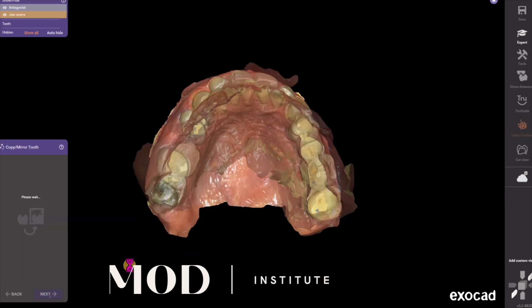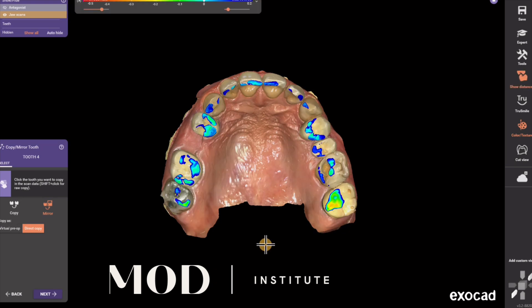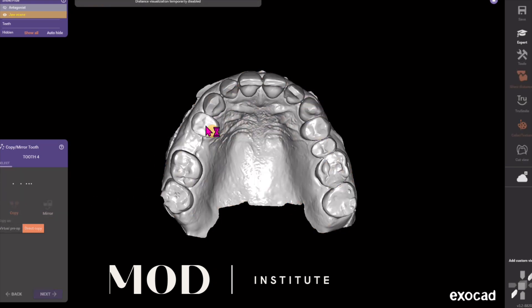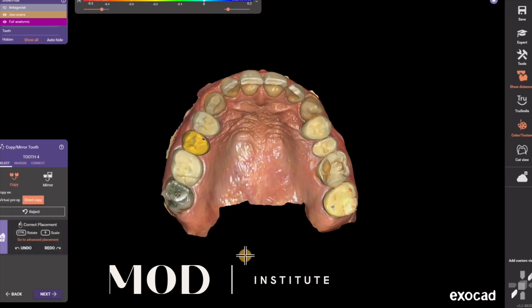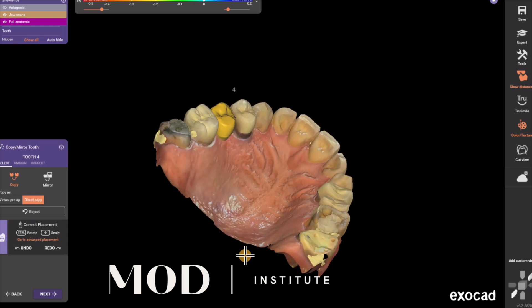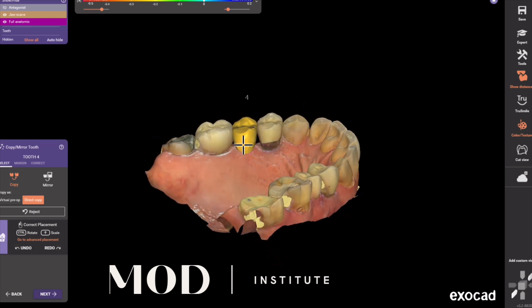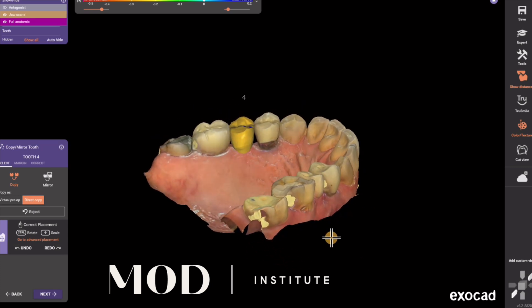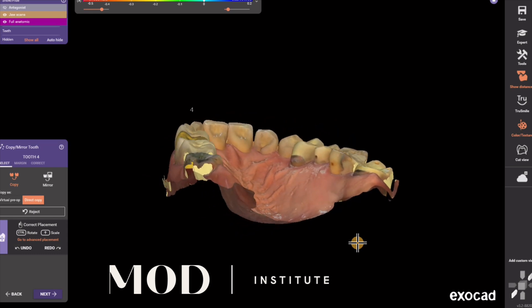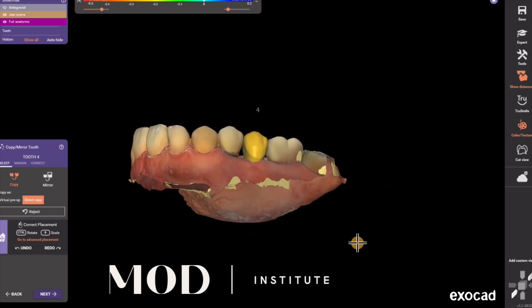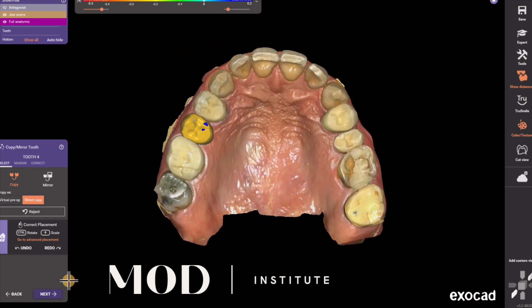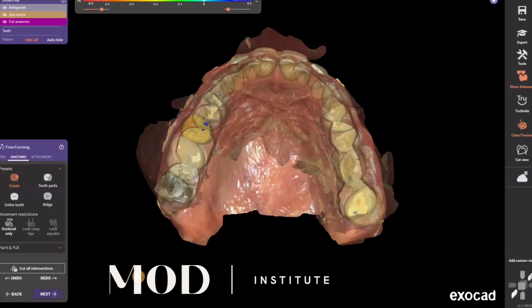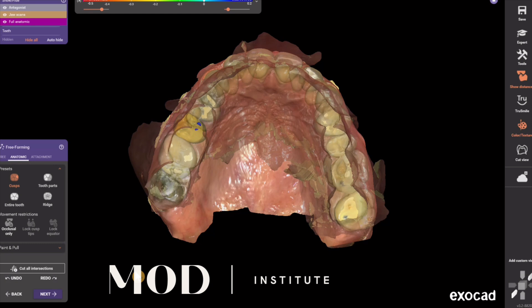You want to be looking straight down on the edentulous space. Step number two, it's going to automatically prompt you to mirror. I'm going to switch to copy. I clicked on tooth number five and dragged it into the tooth number four space. I could have mirrored the contralateral tooth number 13, but I just didn't like that tooth. You can manipulate it: control to rotate, shift to grow it, shift to stretch it, and click to move it.